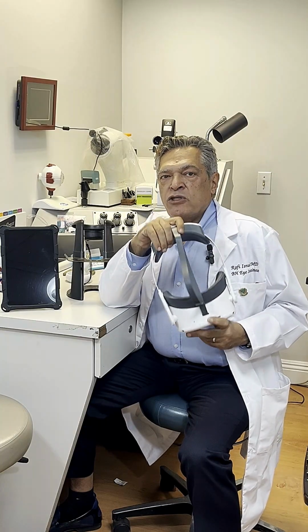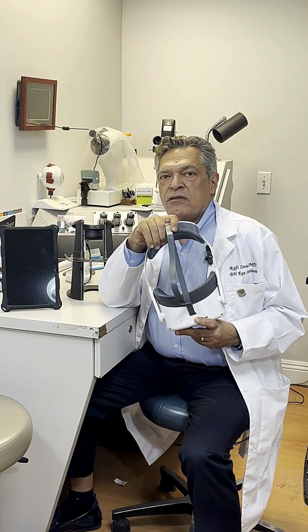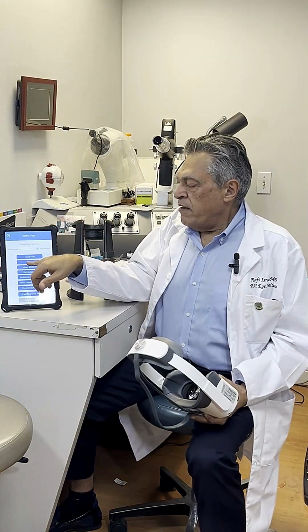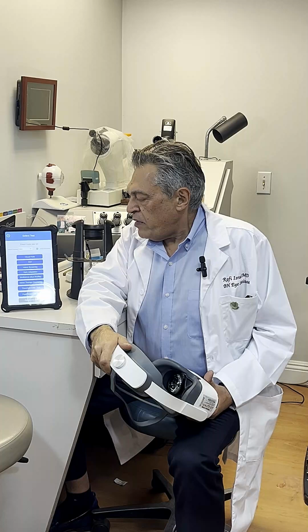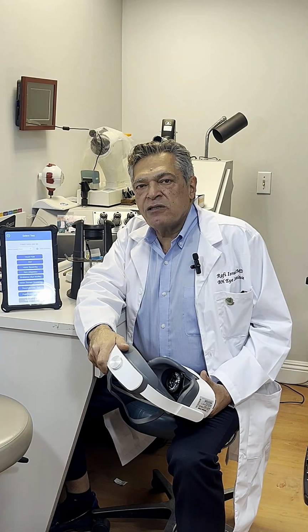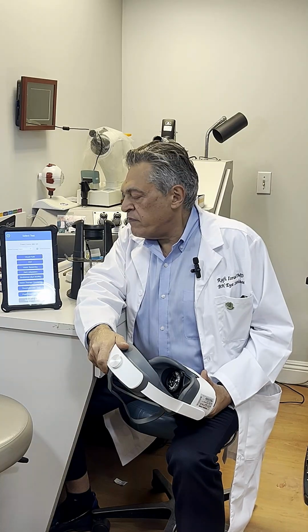In addition to being a visual field analyzer, the machine can now offer multiple tests such as FDT, vision screening, which contains visual acuity, contrast sensitivity, stereopsis, and color vision tests such as Ishihara or D15.